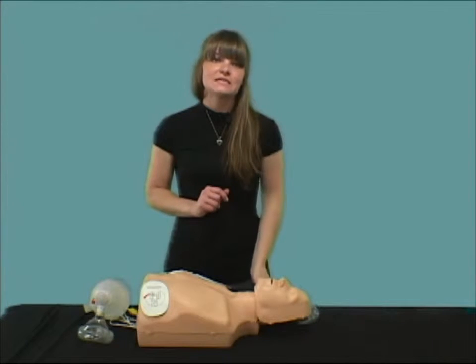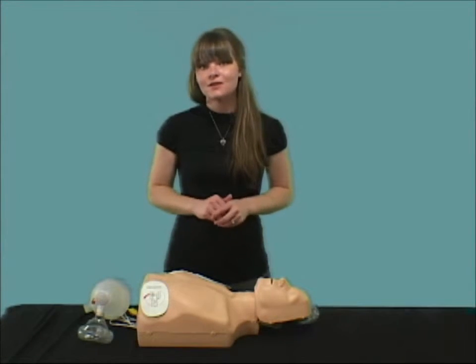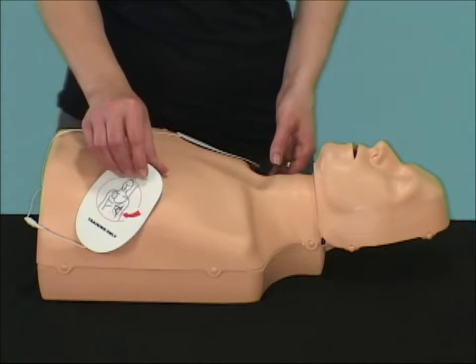Plus, another money-saving benefit is that the reusable valve and the entire mannequin are easily cleaned by following industry standards. With the majority of CPR training also including the use of AED trainers, we made sure that the skin works well with the AED training electrodes. The durable skin does not collect residue from the adhesives of the electrodes.